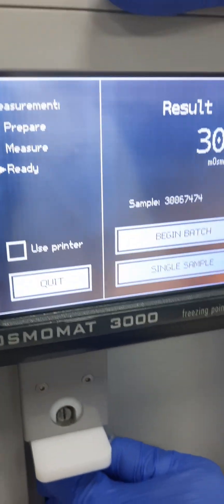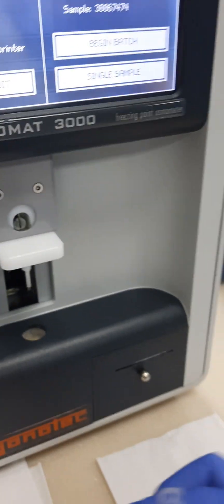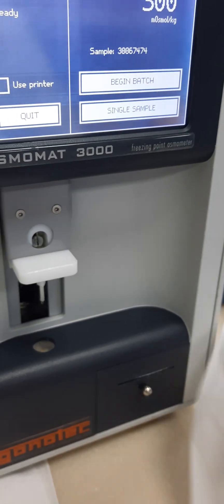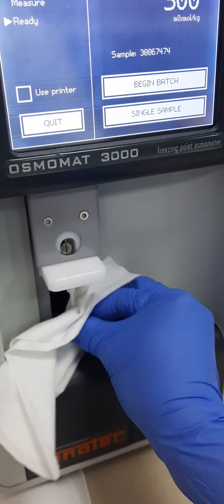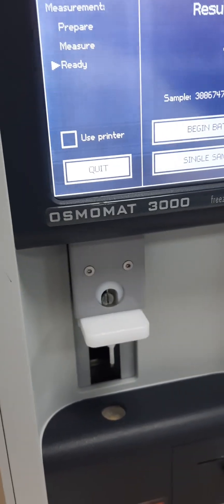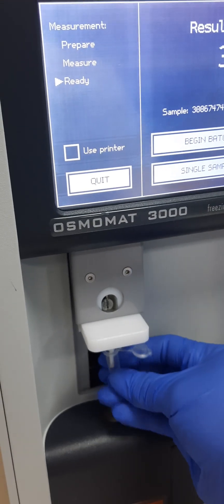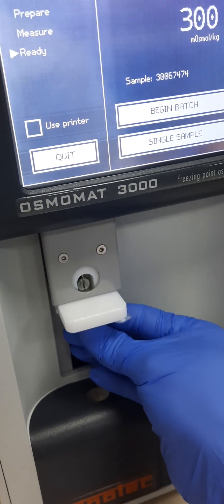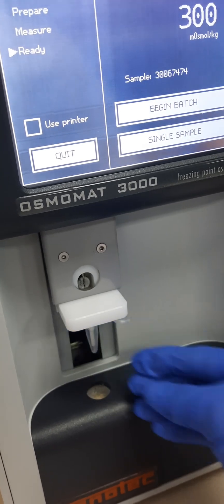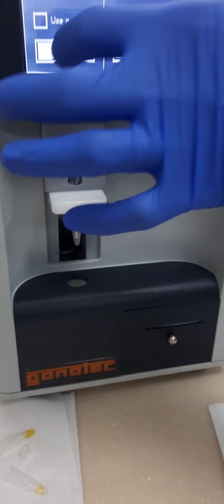Remove this one — yellow. You will clean. Always. Because this is all ice formation. If you don't put the cover, the dust or some particles will be on this cuvette.